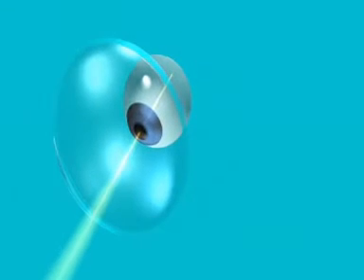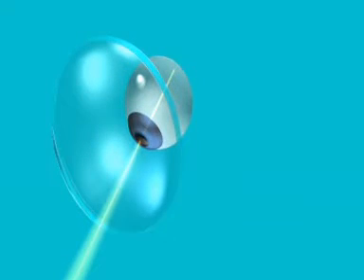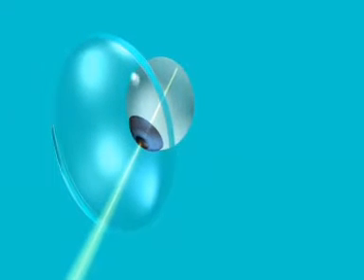With a uniform front surface that follows the eyeball rotation, the line of sight will pass the lens in an extremely natural way.